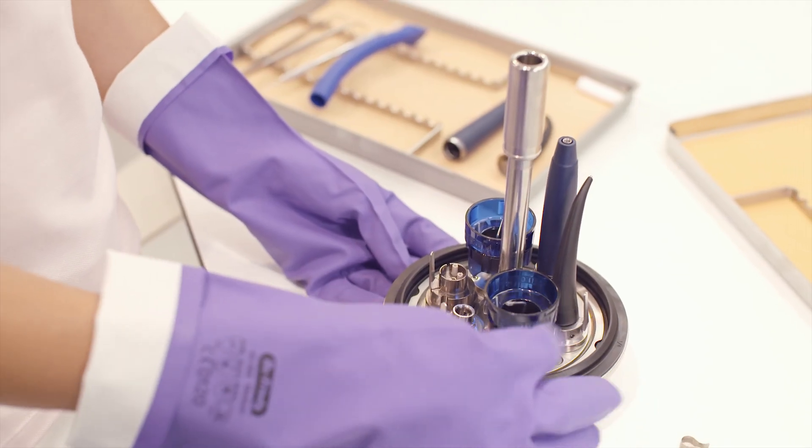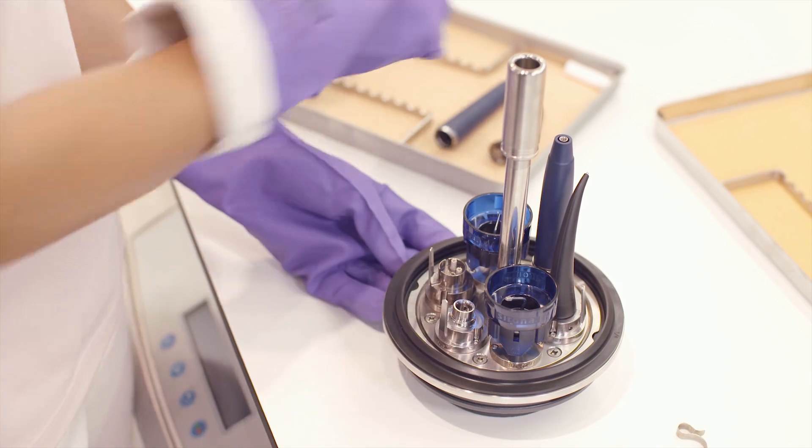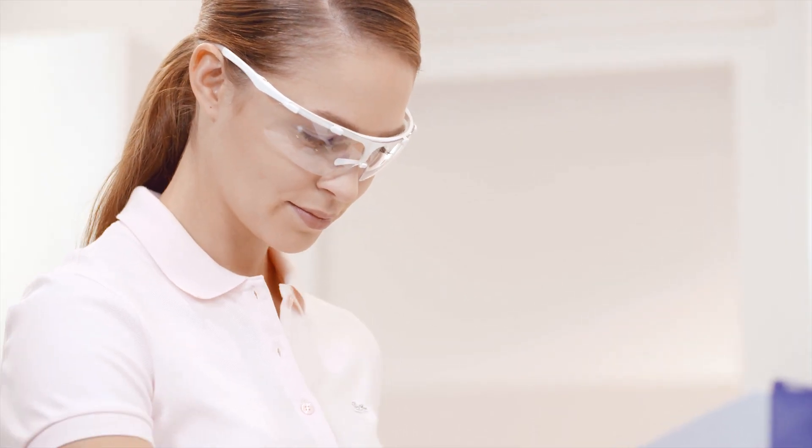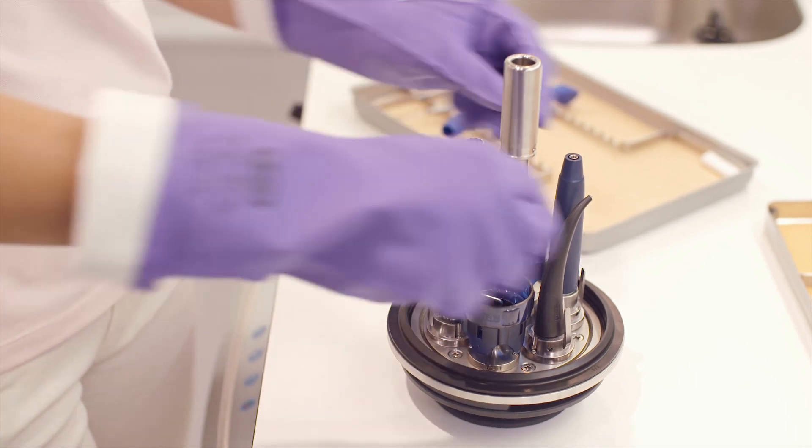Make sure that the tips are attached straight, otherwise they could be bent during reprocessing. Check that all instruments are securely in position.